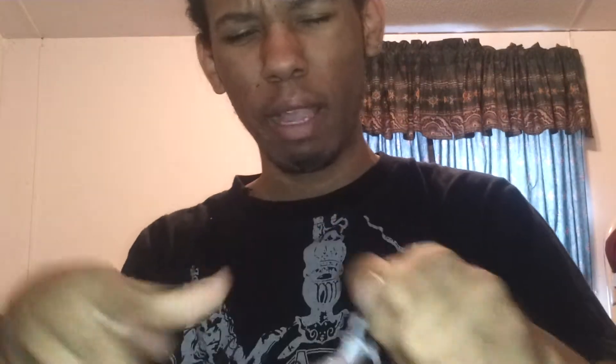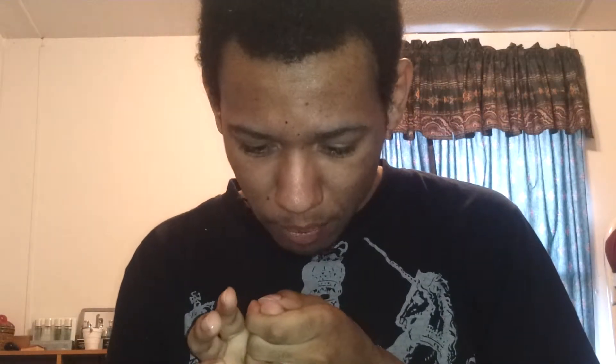So first, this is a new pair of contacts right here — I just broke my nail off. You take your contact lens — I wash my hands, make sure you wash your hands — and make sure it has no lint on it, because you have to dry your hands and lint will hurt really bad.